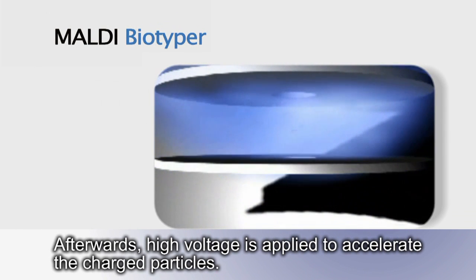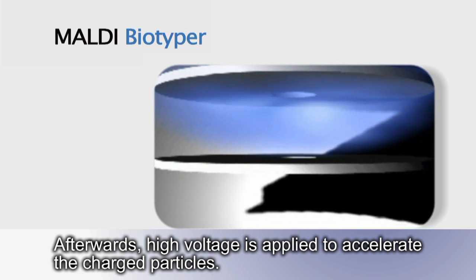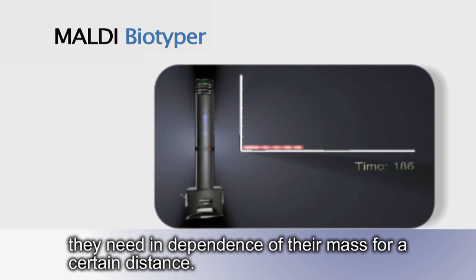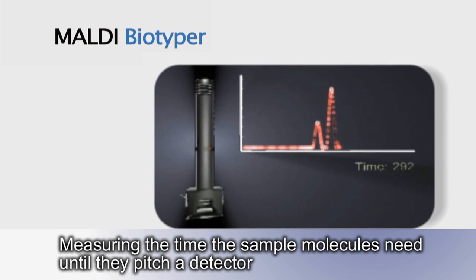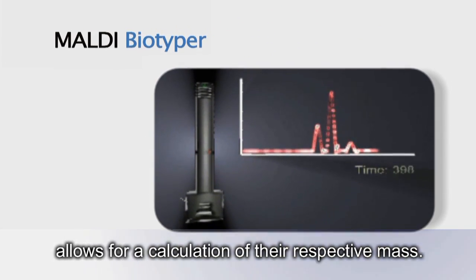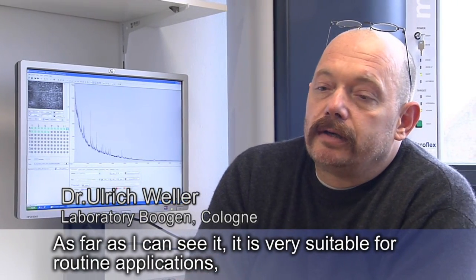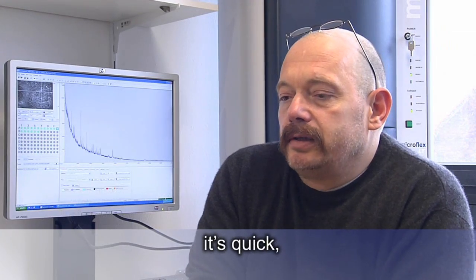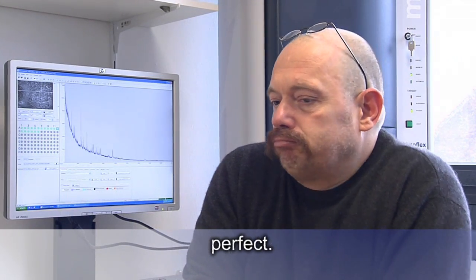Afterwards, high voltage is applied to accelerate the charged particles. In a second step, the accelerated molecules are separated due to the different flight time they need, dependent on their mass, for a certain distance. Measuring the time the sample molecules need until they hit a detector allows for a calculation of their respective mass. As far as I can see it, it's very suitable for routine applications. It's quick, simple to use, perfect.